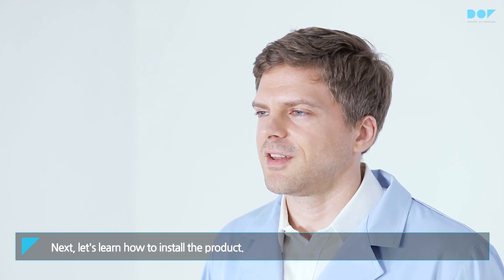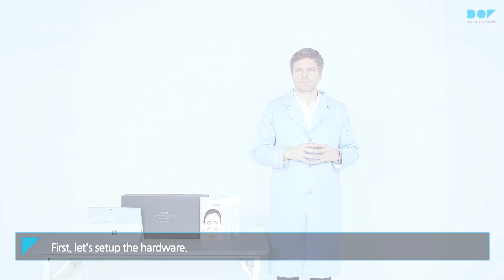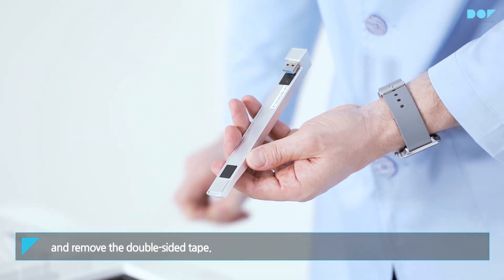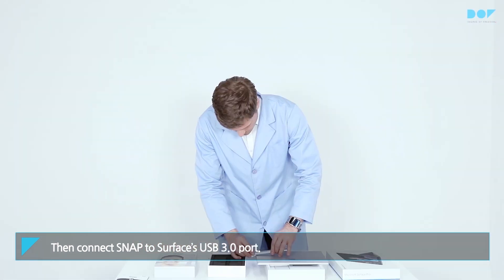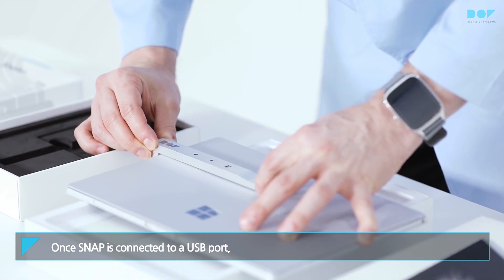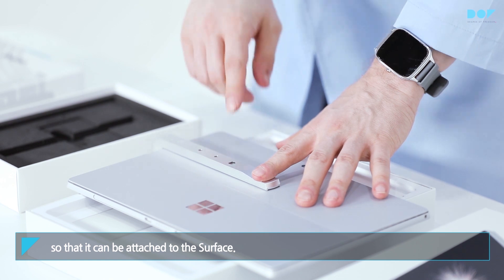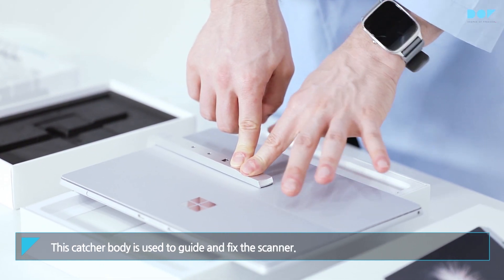Next, let's learn how to install the product. First, let's set up the hardware. Attach the catcher body to the case bottom and remove the double-sided tape. Then connect Snap to Surface's USB 3.0 port. Once Snap is connected to a USB port, press the catcher body so that it can be attached to the Surface. This catcher body is used to guide and fix the scanner. It is important that you make sure the catcher body is stably attached.